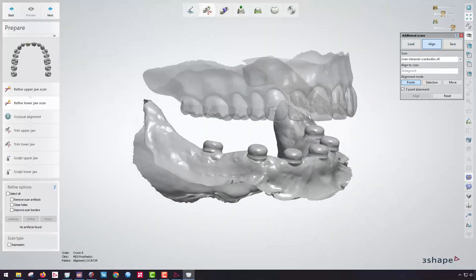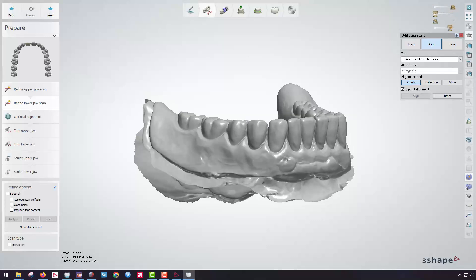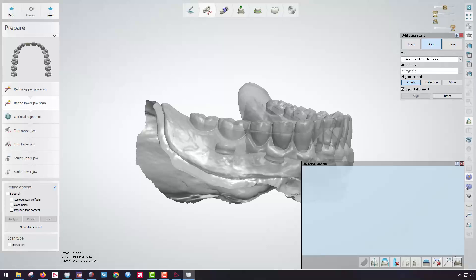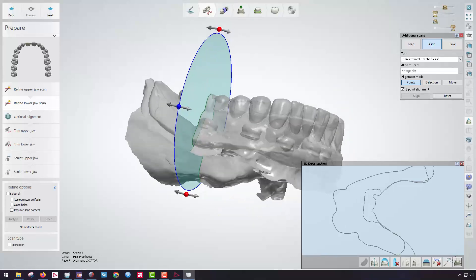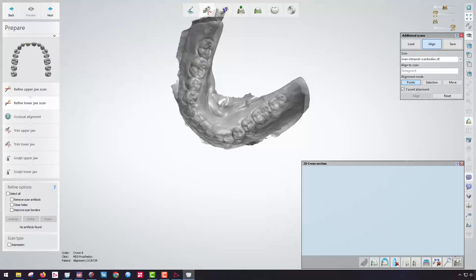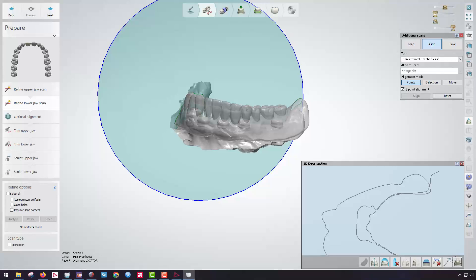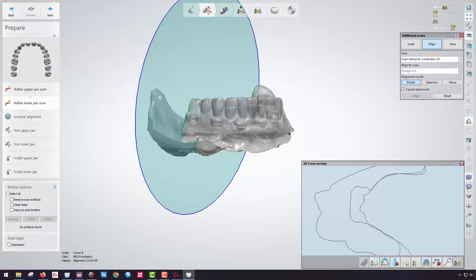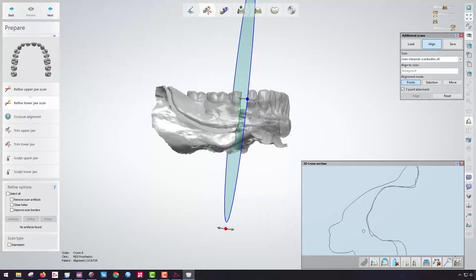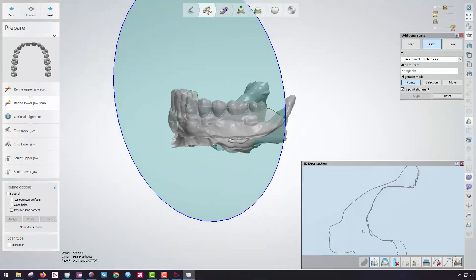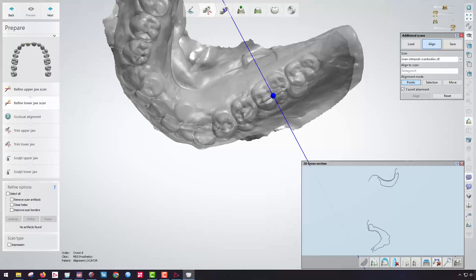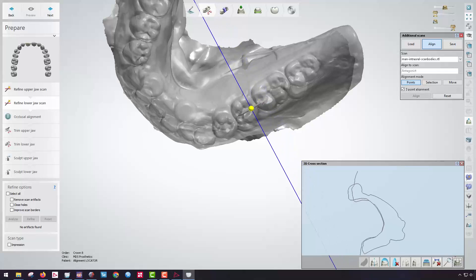To verify this, it's very important to use the cut function. Using the 2D cross-section tool — I'll left-click that and draw a line through the model — this gives me the opportunity to see where my two lines intersect. That looks pretty good. I may want to repeat that just to verify it's in the right position. I'm verifying that these two little sets of lines are in similar positions on each side. I can repeat that on the other side or use the built-in software functionality for a quick assessment. Overall, that looks pretty decent.